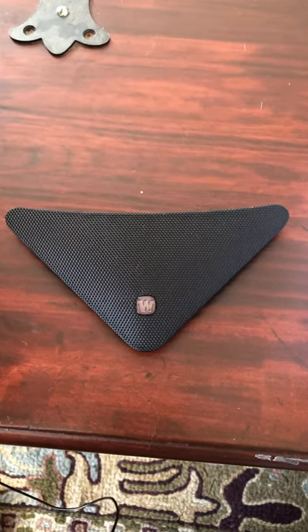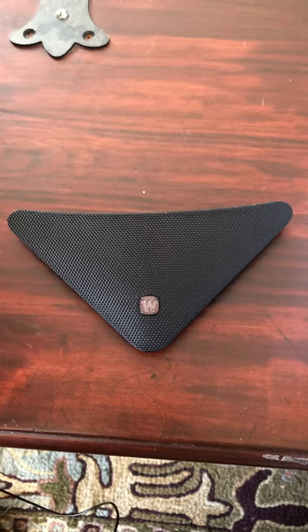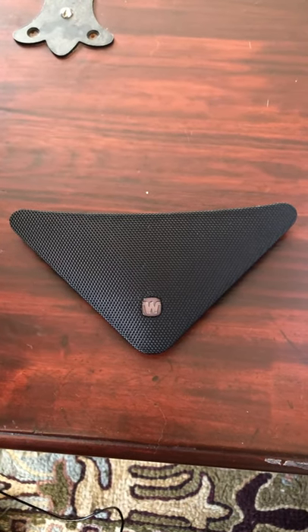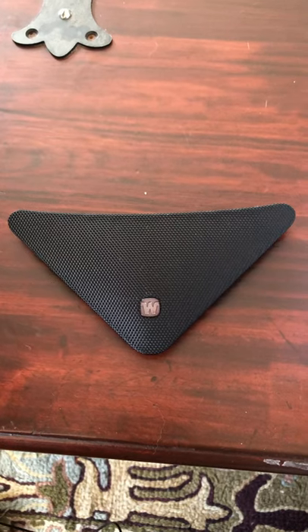In this video we're going to show you how to hook up a Widex TV Play to the back of your television and how to pair the TV Play to your Widex devices.